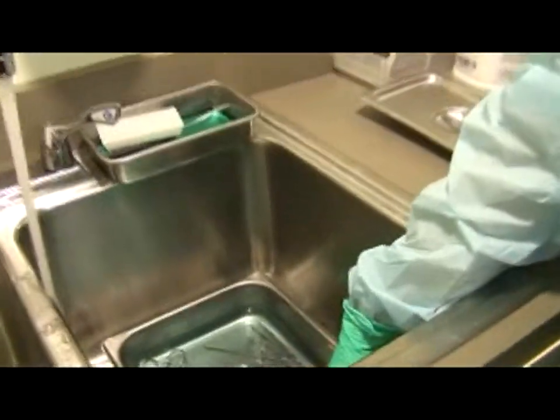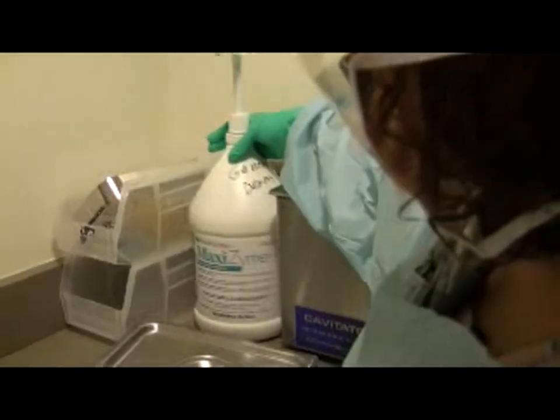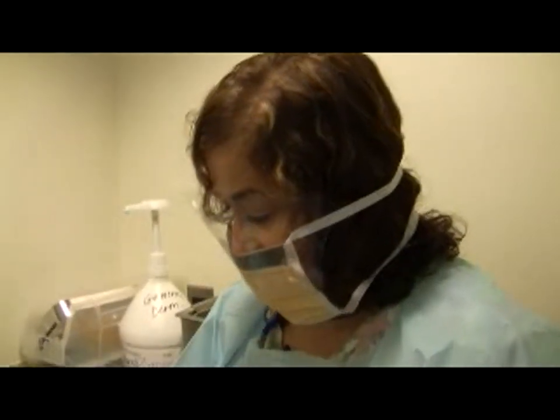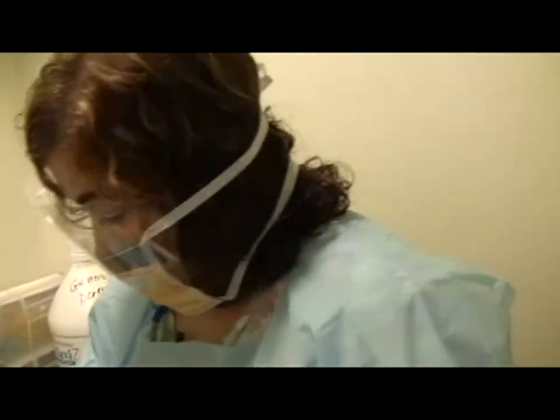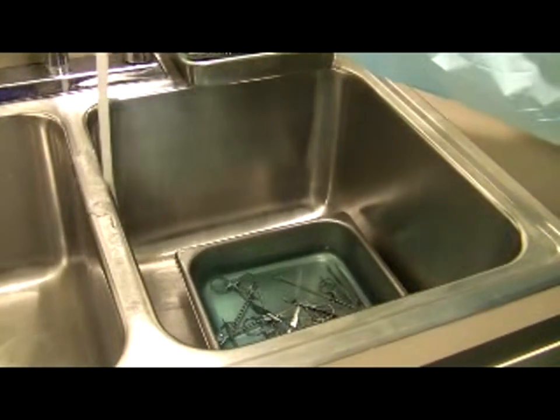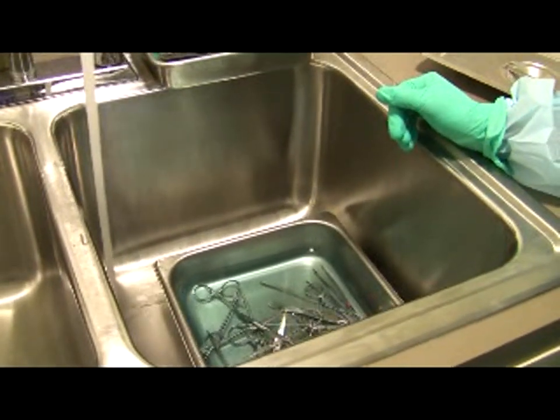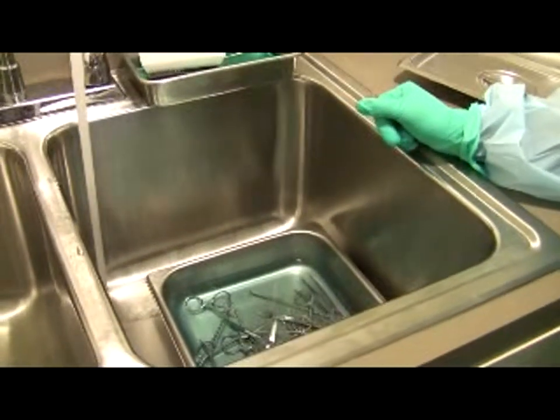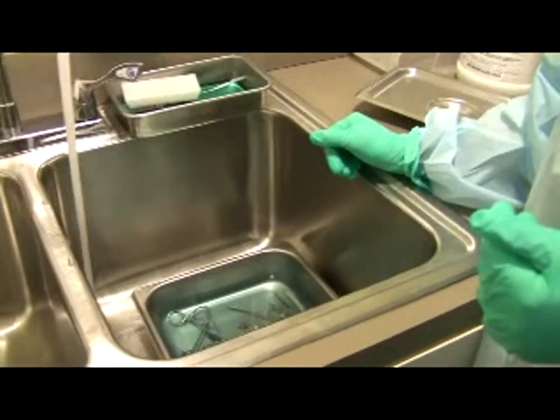Carmen is electing to double-glove today. The soiled instruments are in MAC/Maxizyme and water. The instruments are in that soapy water for 30 minutes — it helps loosen any dry blood. Place the metal container in the soiled sink, fill it with enough water to cover the instruments, and mix with Maxizyme detergent — three to four pumps yields a bluish hue, the exact measure is one ounce per one gallon of water. Soak instruments for 30 minutes. Do not leave overnight or they will rust. Instruments with joints — suture scissors, gradle scissors, needle holders, mosquito clamps, nail clippers — must be left open in the Maxizyme.